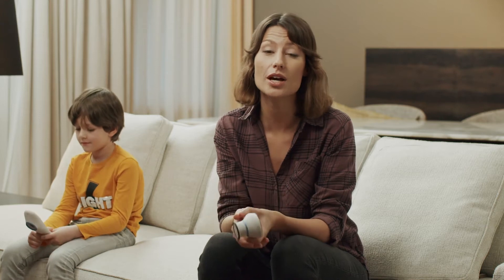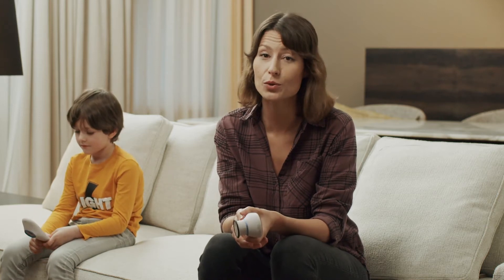Hi! Did you know there are at least several hundred types of coughs? It's worth recording it. Often, as soon as the doctor hears it, he will know immediately what is wrong.